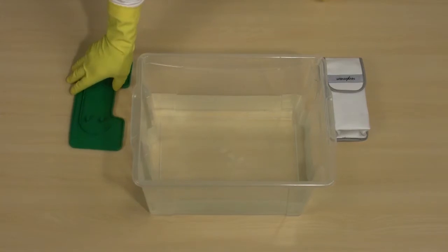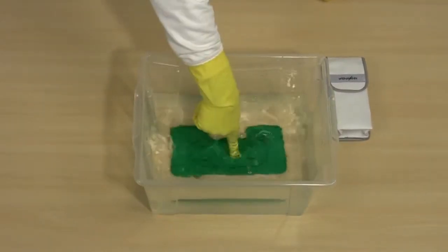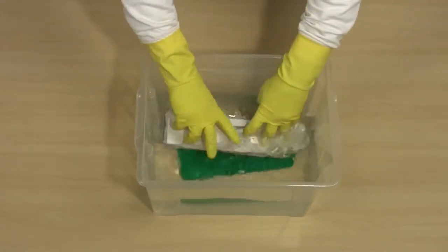You can immerse the accessories bag and the tube holder plate into a disinfectant solution. Do not leave the parts in the solution longer than recommended by the disinfectant's manufacturer.